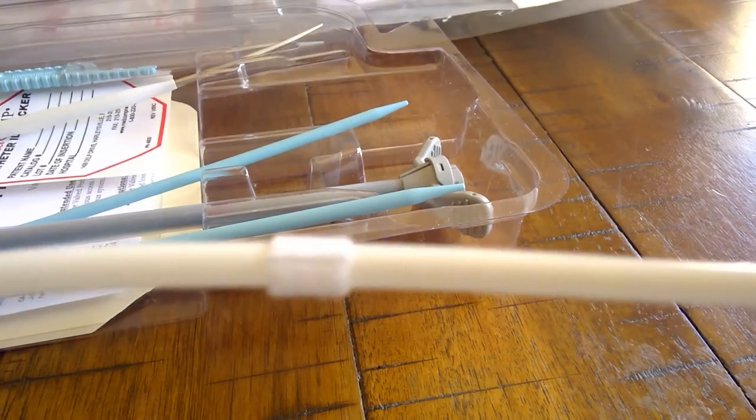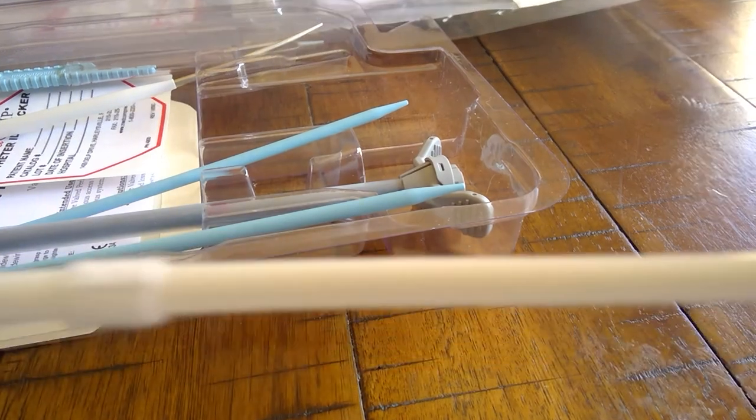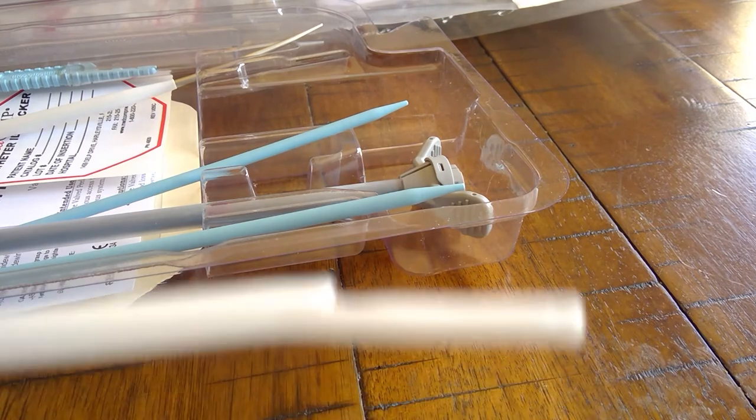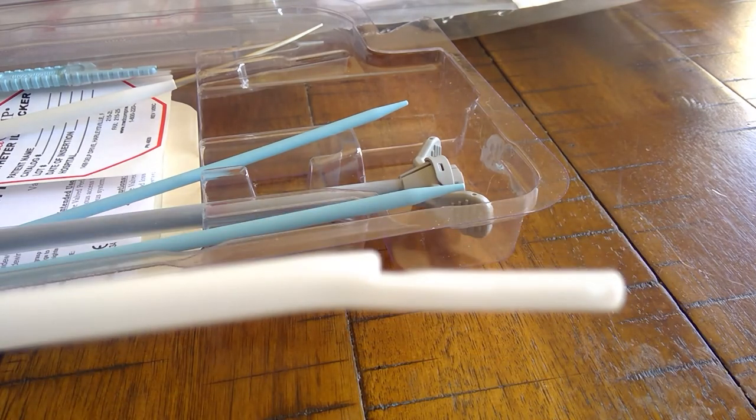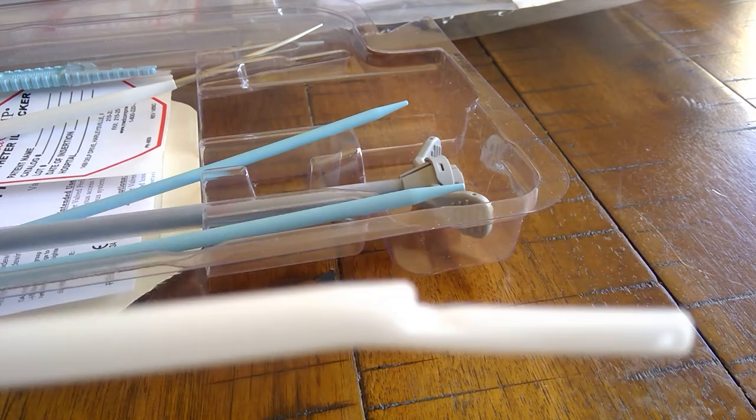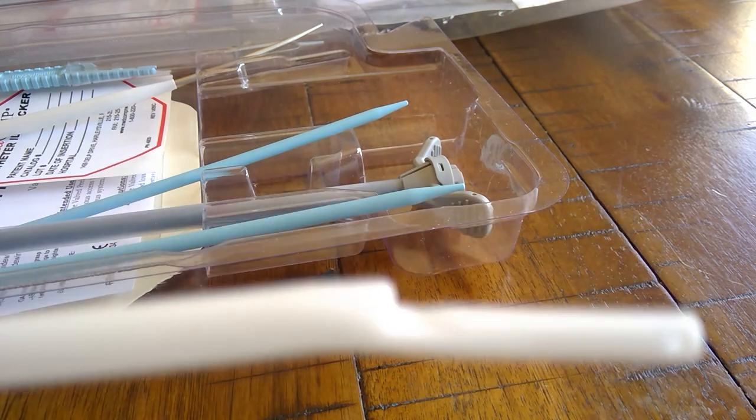It's got a cuff because it's long term. That's a Dacron cuff to adhere to the tissues in the tunnel, prevent migration of the catheter, and infection. That's a step tip Titan long term catheter.